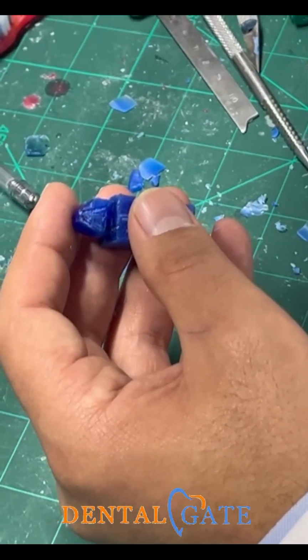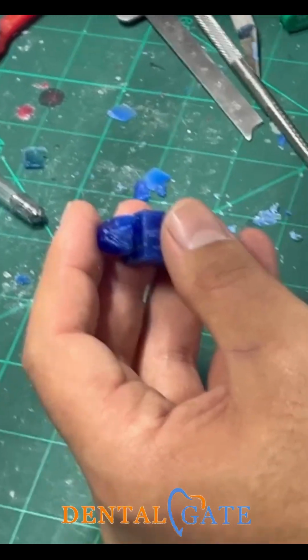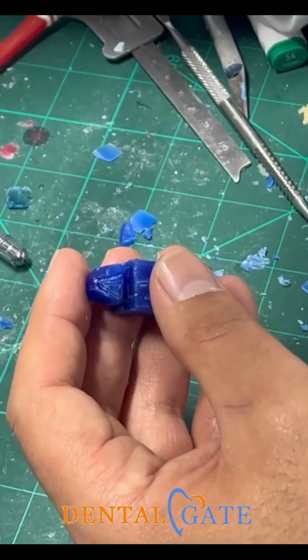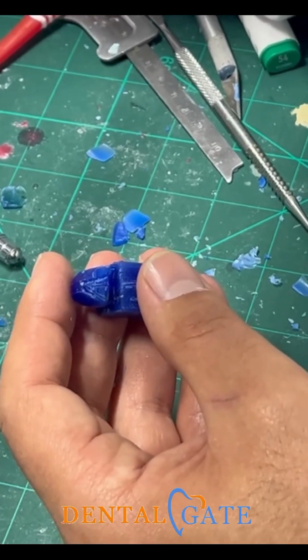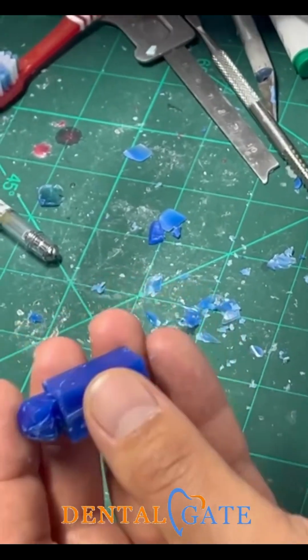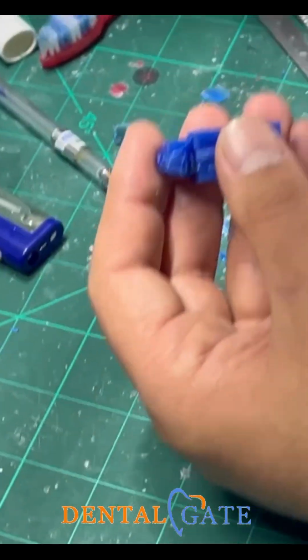Okay? If you want to make a bigger lateral, just increase the measurement. The shape will be preserved by the measurement. This is our objective, not the measurement. Maybe we need the lateral incisor bigger than the other one. I need a proportion for this shape.